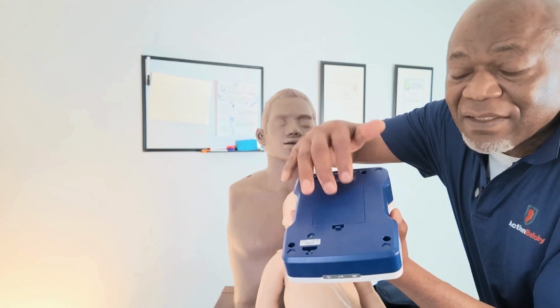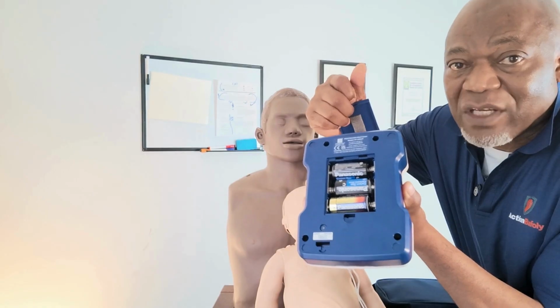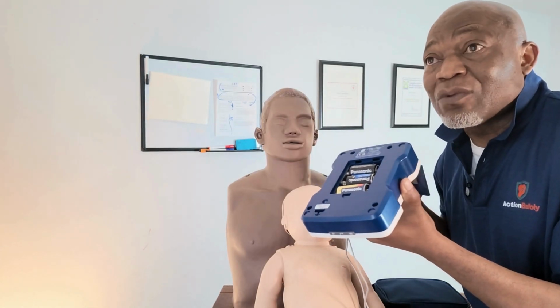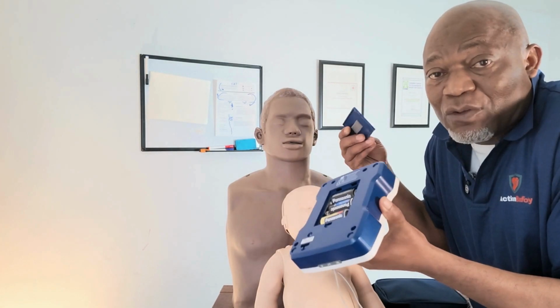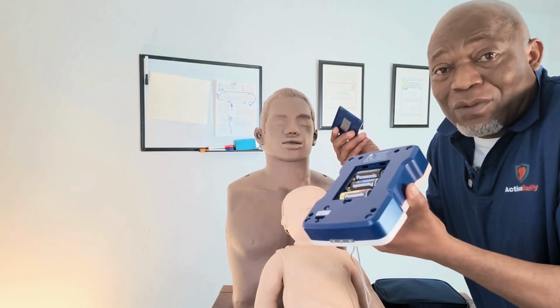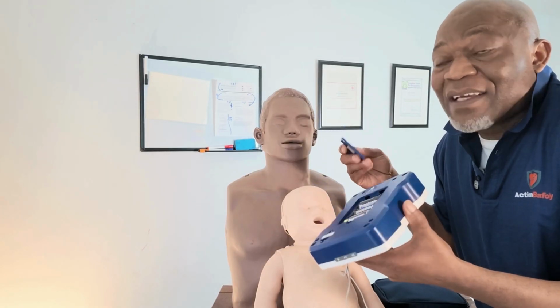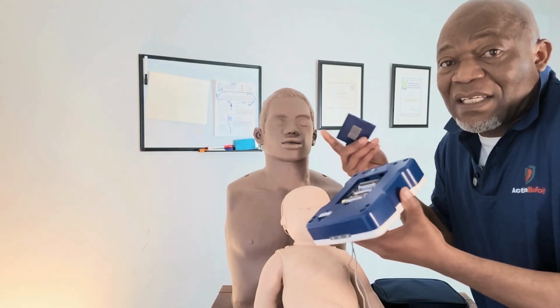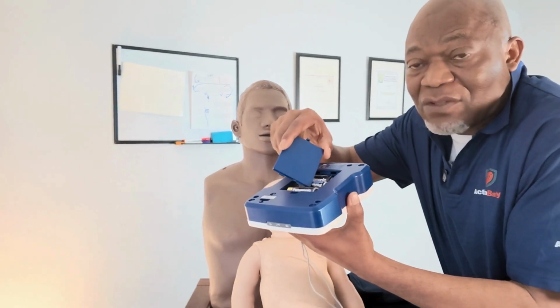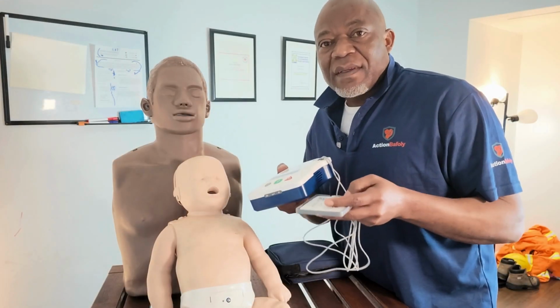At the back of the AED, there's a battery section where you need to regularly replace the battery. This is one of the issues that companies have. Sometimes the battery will be expired and they will not know. So when there's an emergency, the AED will not be functioning. That's why we provide a service whereby we regularly check AEDs in companies or workplaces. So there's a section for the battery there. Let me close it. Okay, let's continue.